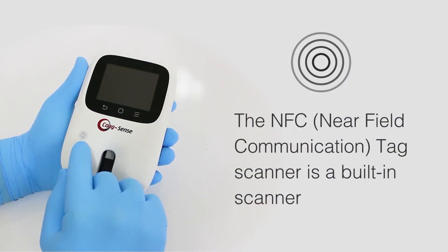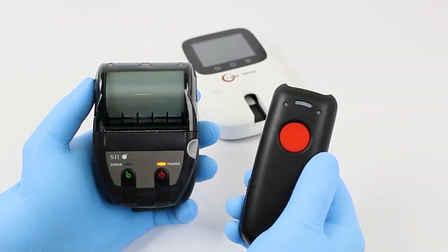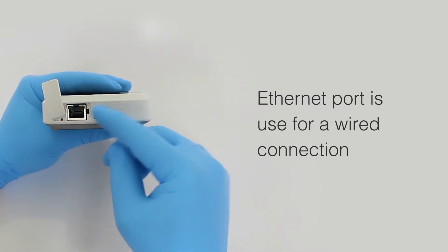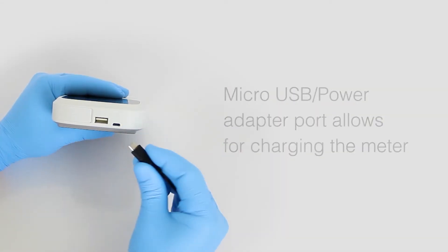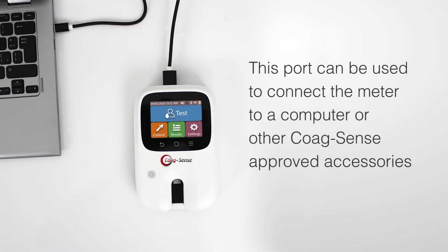No matter where you are, results can be communicated via Bluetooth, Wi-Fi, Ethernet, or USB to the required electronic health record, testing service provider, or data management system.